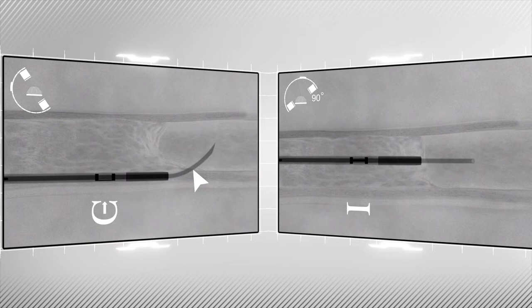Then, with the needle length selector in the full red position and with a swift motion, advance the needle slider with your thumb to deploy the full length of the needle. The needle should cross the vessel wall and enter the true lumen.